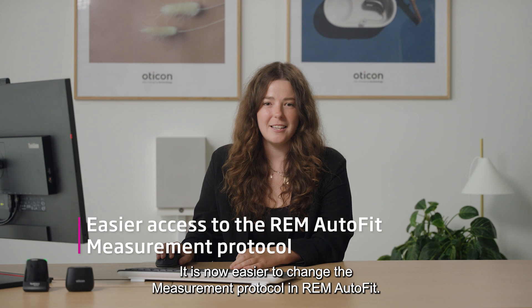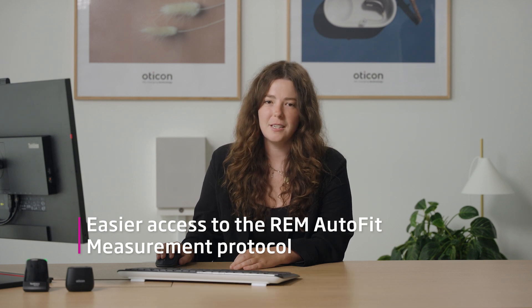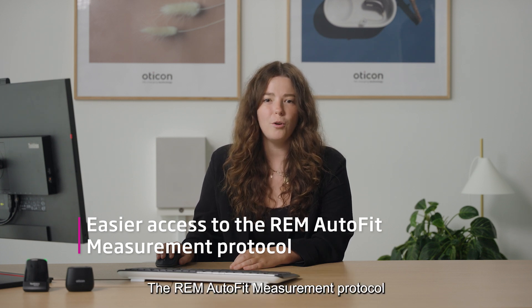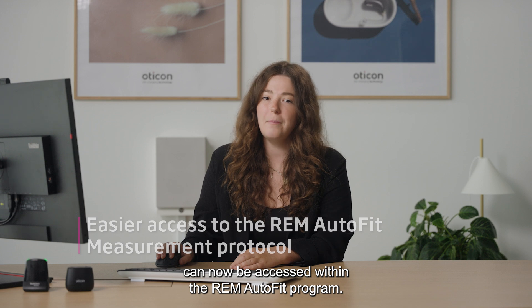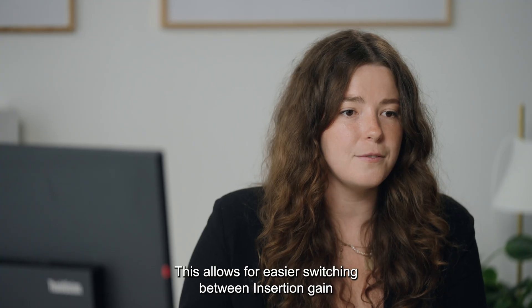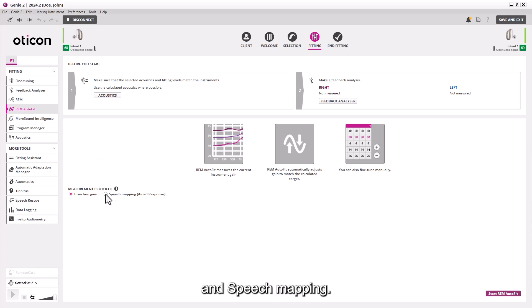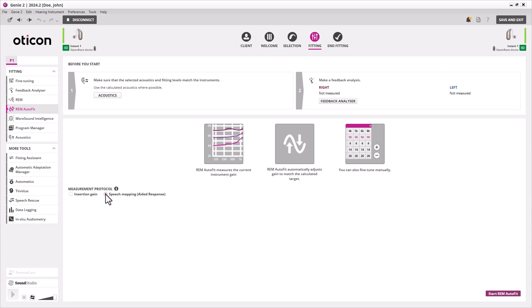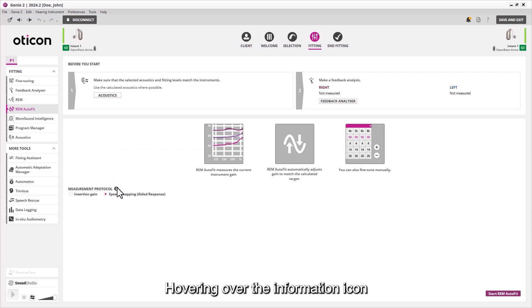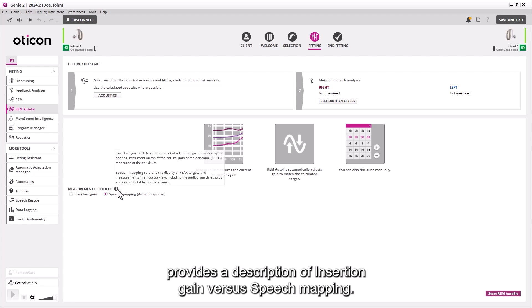It is now easier to change the measurement protocol in REM AutoFit. The REM AutoFit measurement protocol can now be accessed within the REM AutoFit program. This allows for easier switching between insertion gain and speech mapping. Hovering over the information icon provides a description of insertion gain versus speech mapping.